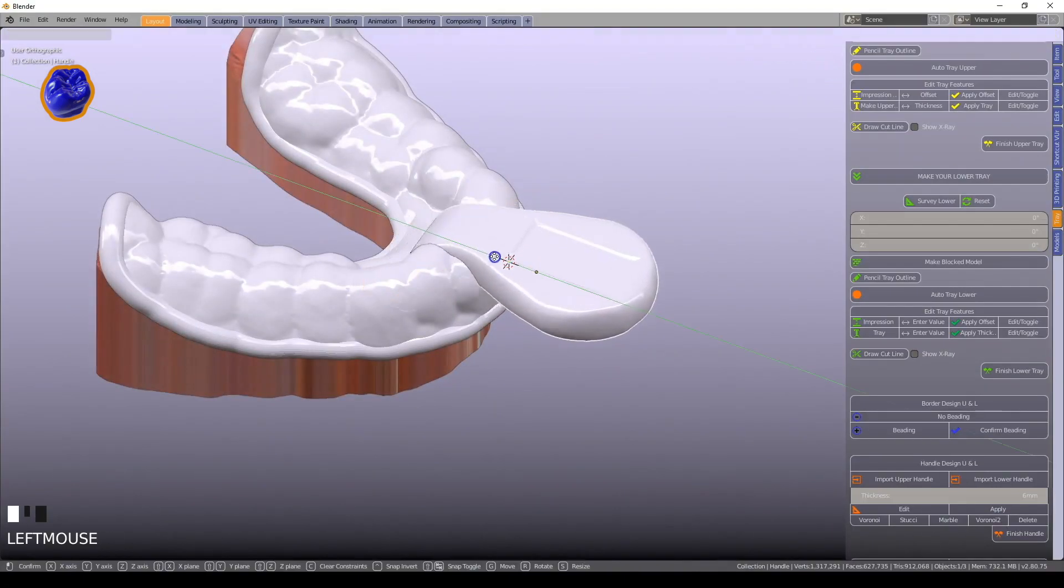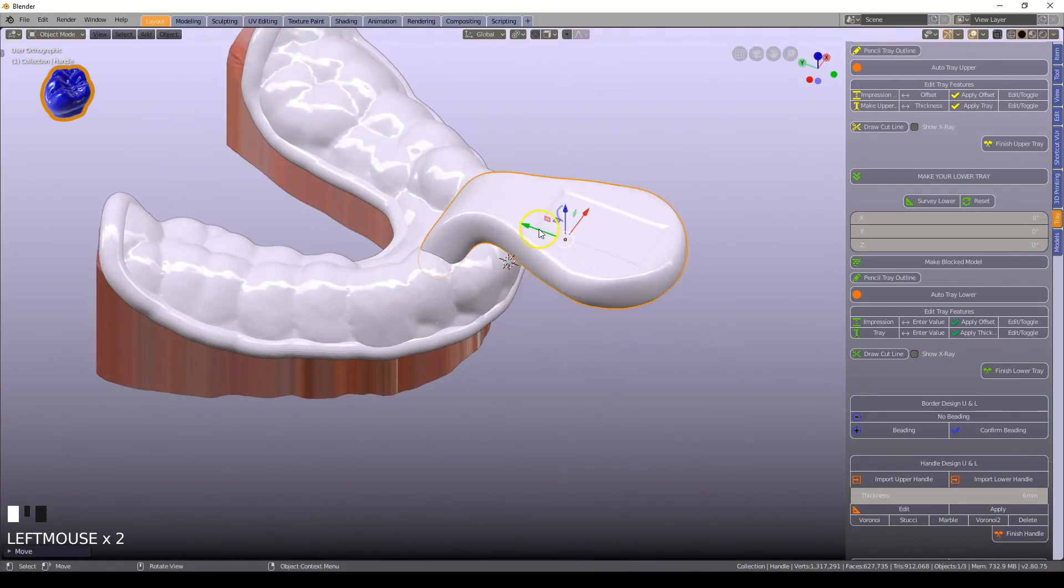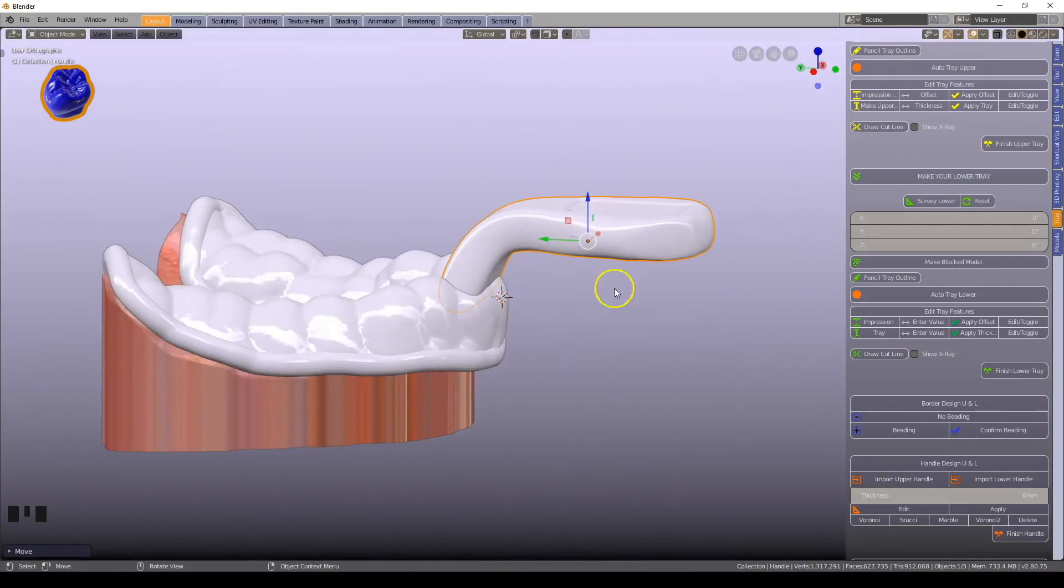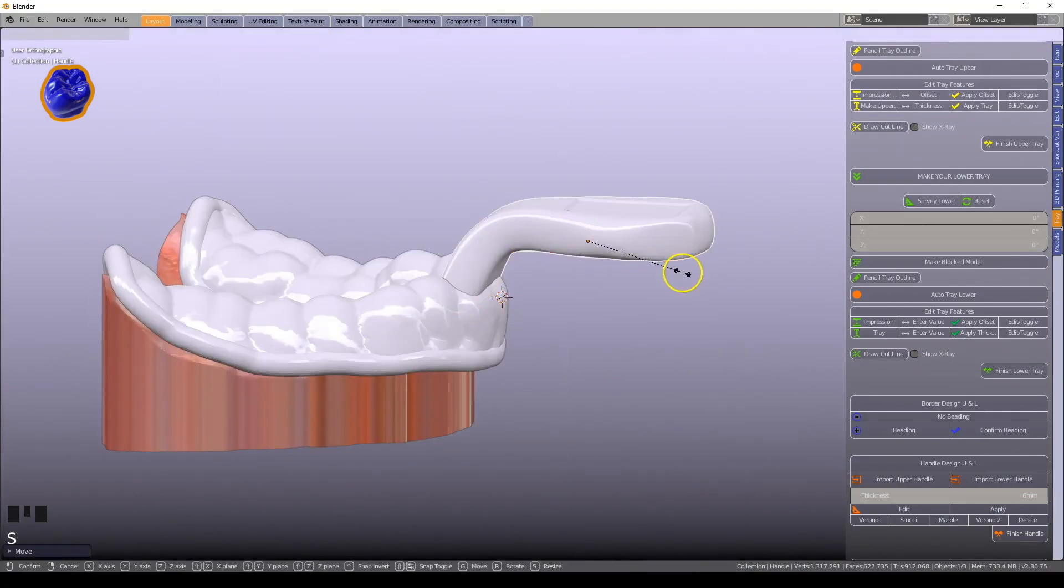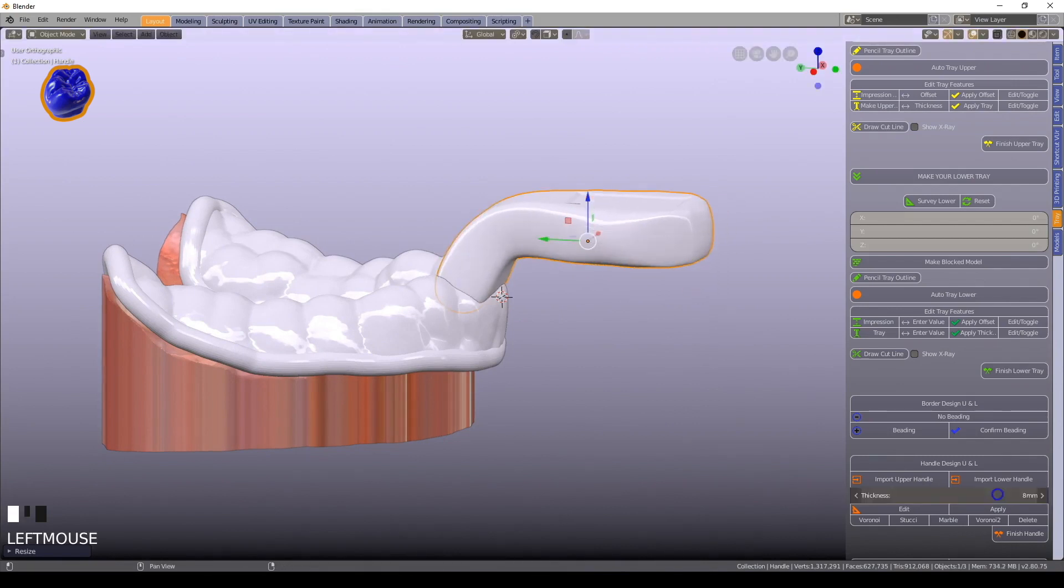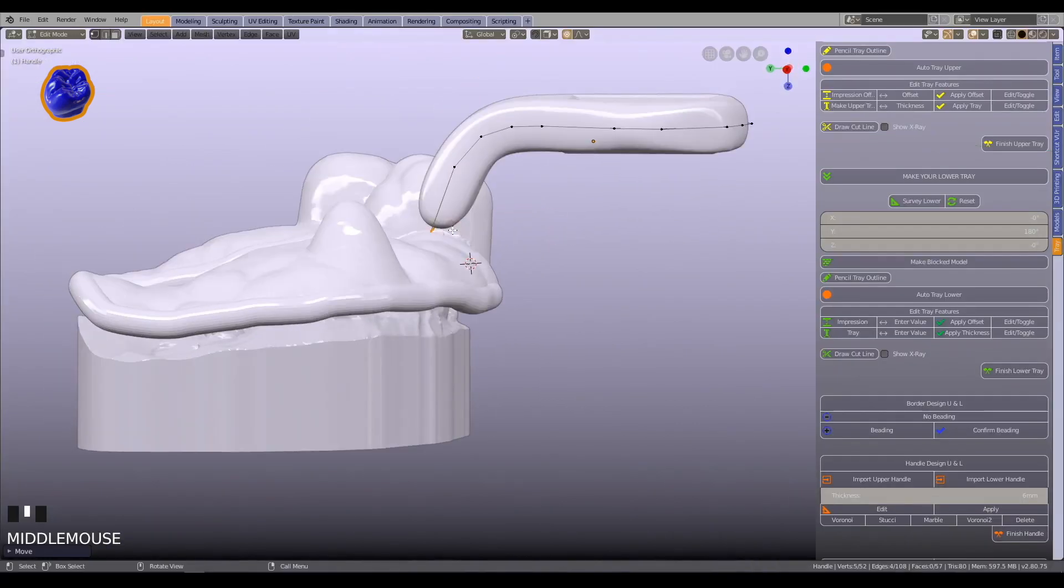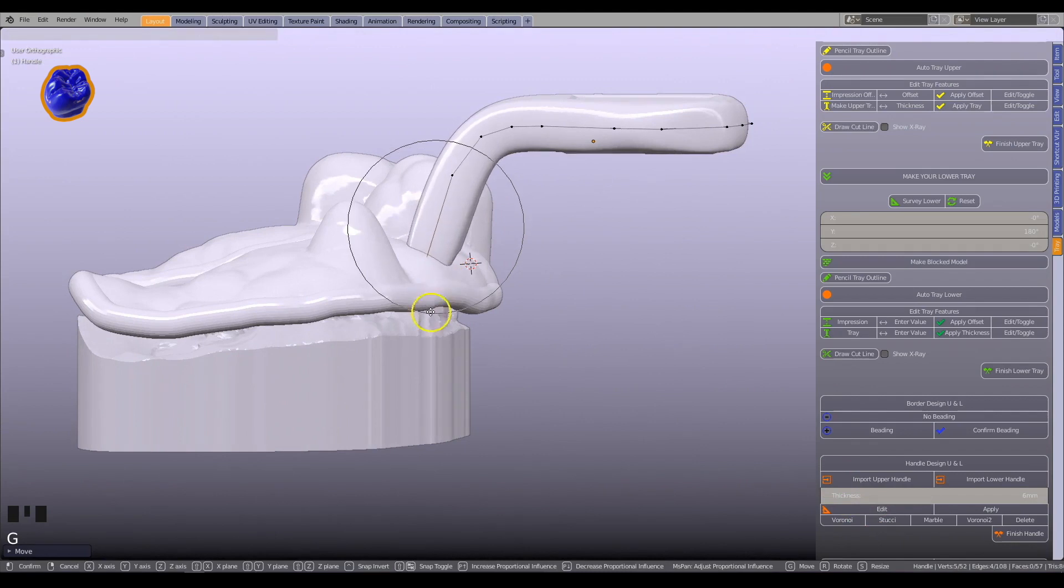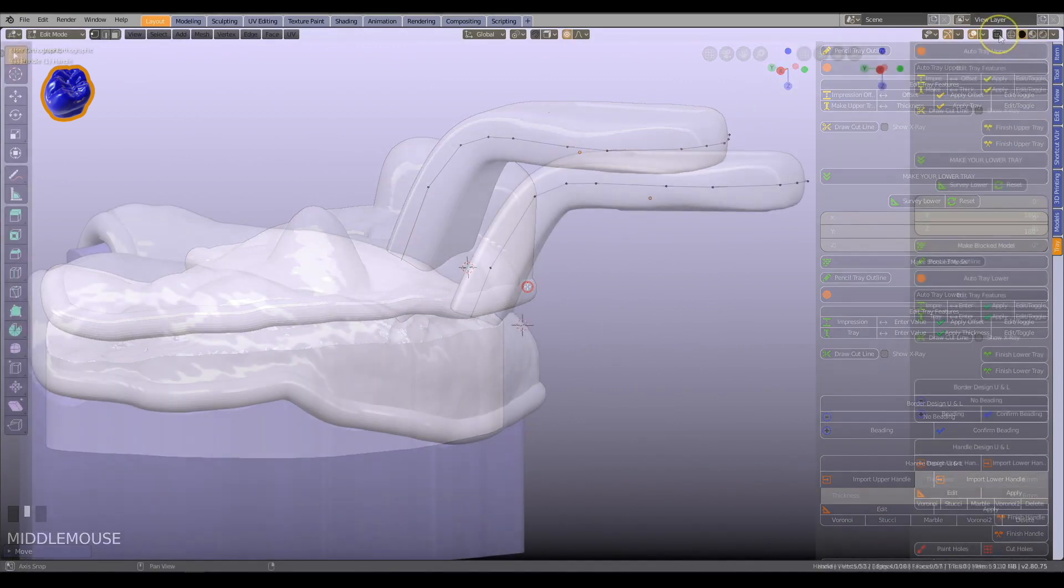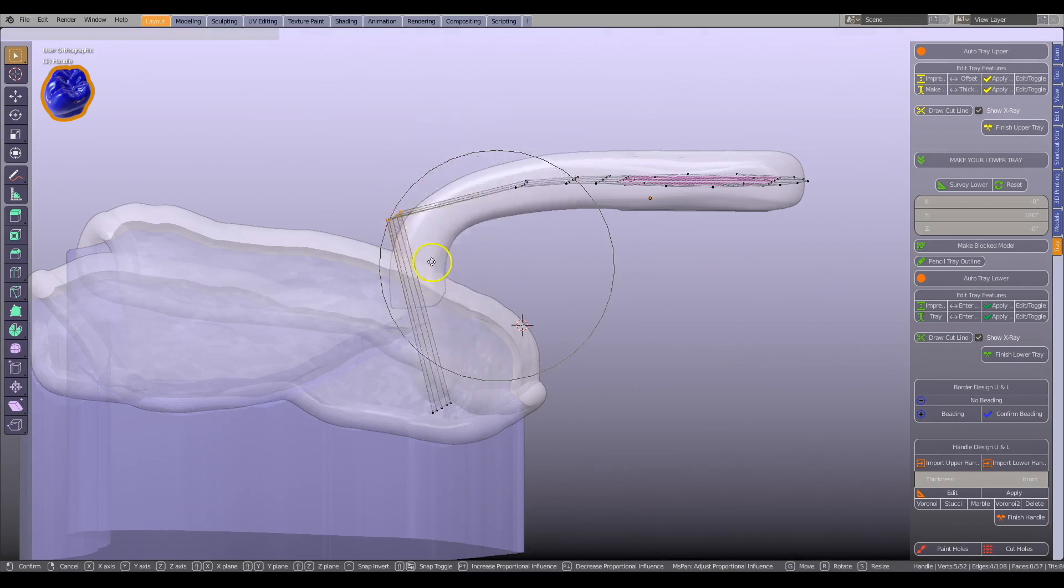The handle is automatically imported in a suitable location. It can be scaled, or thickened, the length can be adjusted, and you can bend the shape any way you like.